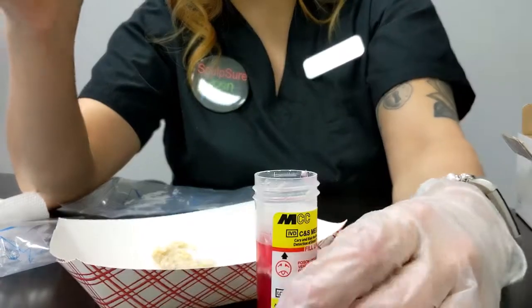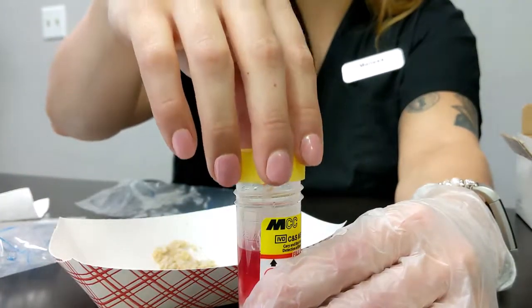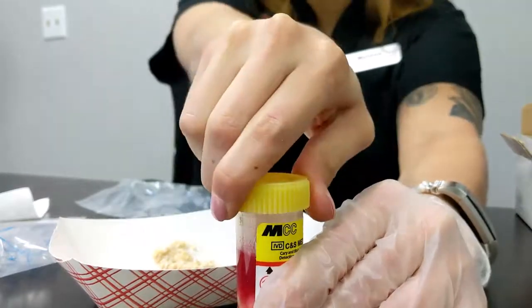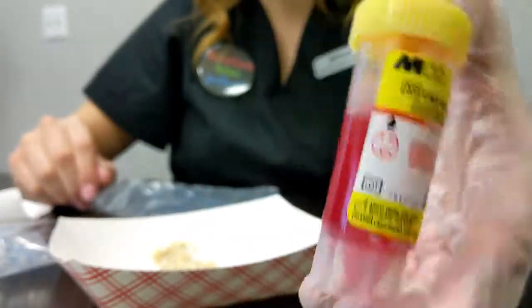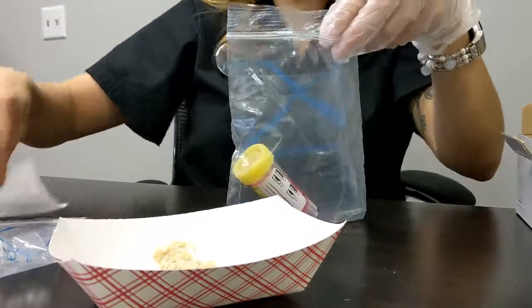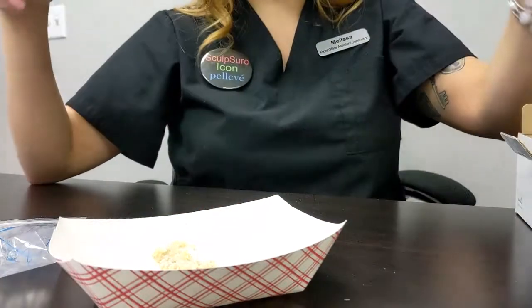As you may see at this point, it is at the fill line, so you should be good to go. Don't want to overfill this or else you can't shake it up, and that is what we're doing next here. So close this very tightly, make sure it is secure, and then you're going to shake it up to get the preservative all over that stool specimen. Once that's done, you can put it here in the bag with the paper in case there's any spillage. Hopefully there's not. And this can go right back in the box.